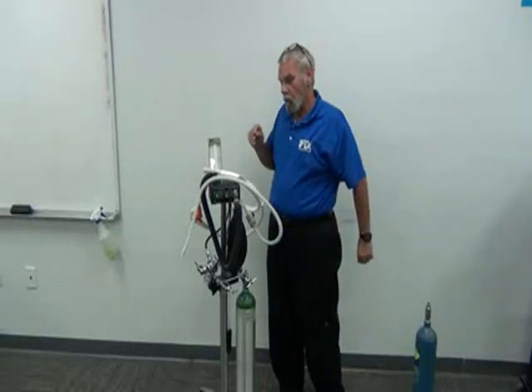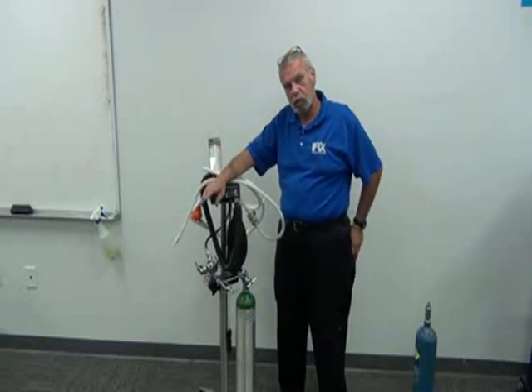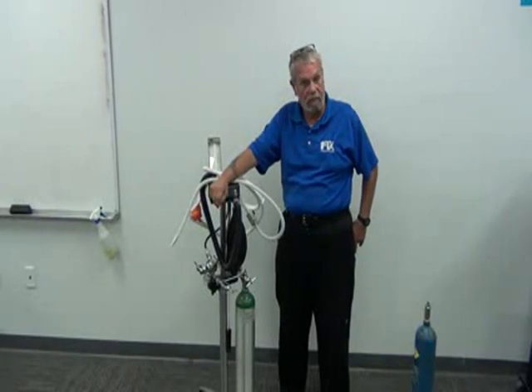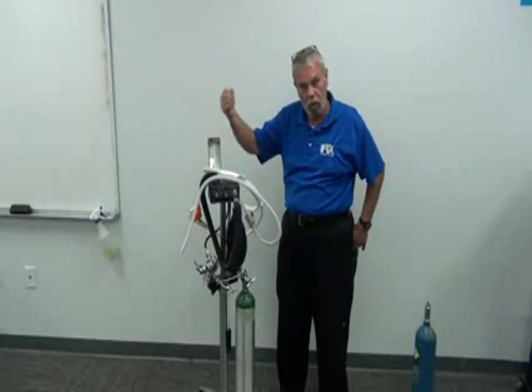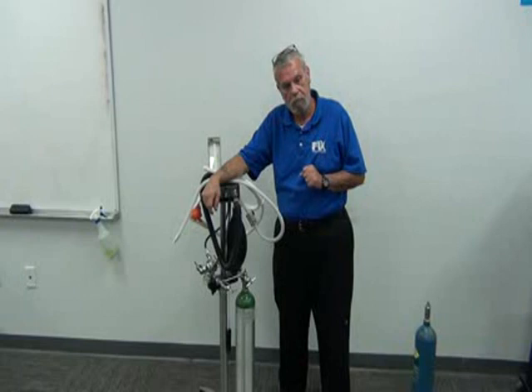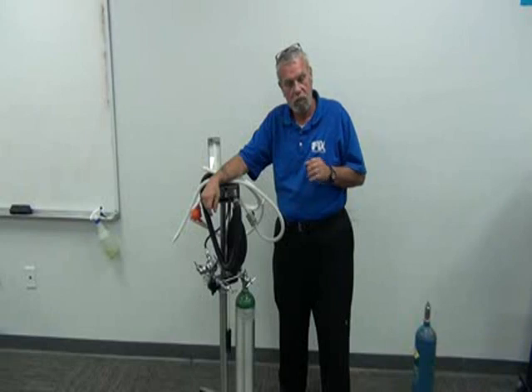Now, one of the downfalls of a mobile system is there's no alarm on them to tell the doctor when he's running low on gas. So when he runs low on gas, it just shows by running out of gas. The meters, the balls drop, the gas stops. On a central system, you have an alarm that tells the operator when he's running out of gas. It also cuts the tanks off manually at night.